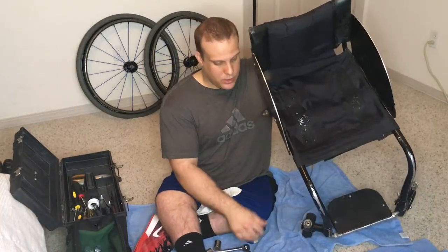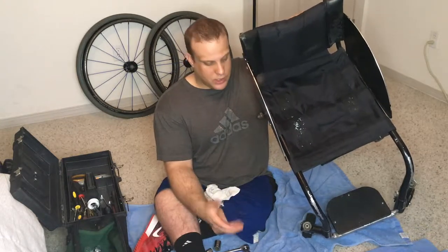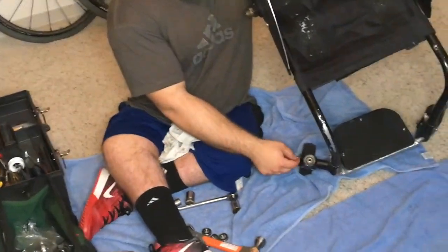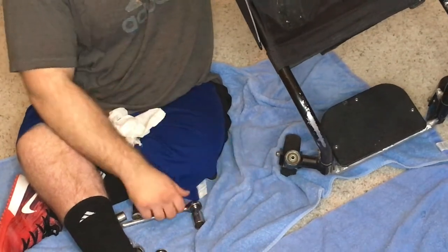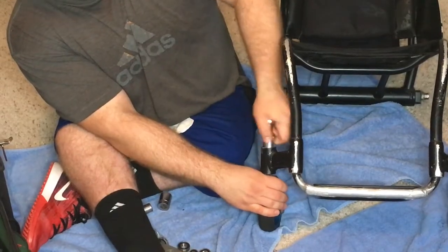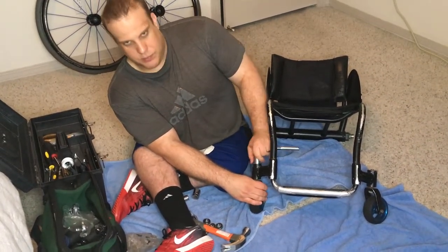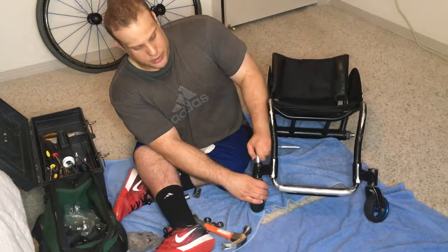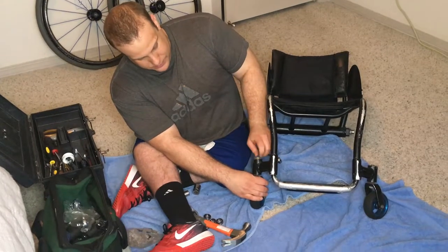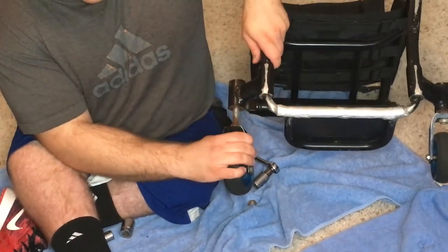I've got a Performax and the Performaxes are really easy to work on. They keep it simple — there's not a lot of parts. As you can see on the top here of the caster fork bearing housing, there's just one big nut that holds onto the stem that goes down to the caster fork. For this, we're just going to take our ratchet and take that off. You might need to use a little bit of liquid wrench or something. You don't need to worry about corroding a bearing because you're taking them out anyway. So get that loosened up and the nut off.